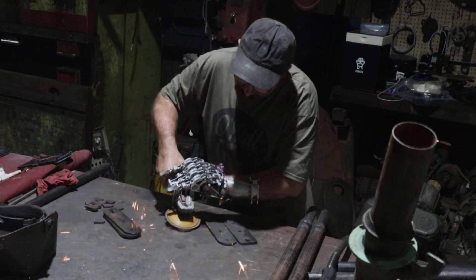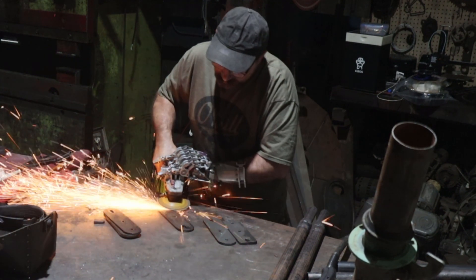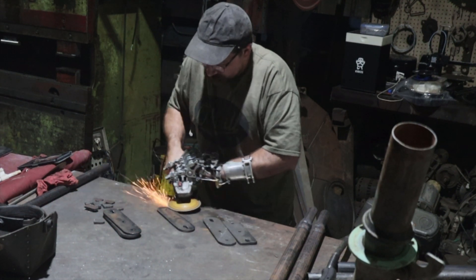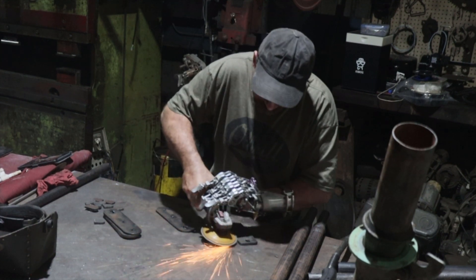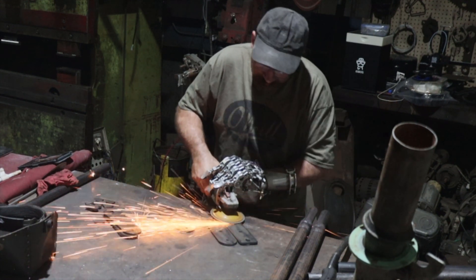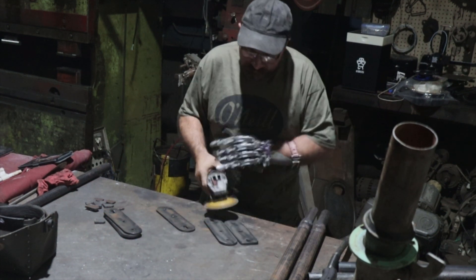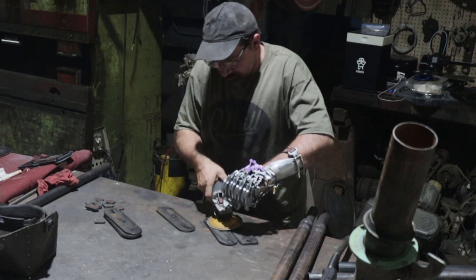With my continued use of this new device, I'm finding more and more applications that I can once again perform. I hope that by continuing to show my progress and innovations in the design of my prosthetic hands, and demonstrating what a machinist working out of a reasonably equipped machine shop in nowhere Southern Oregon can do, I'll somehow be able to affect what the major recognized providers will choose to bring to market and better meet the needs and desires of fellow amputees. Hopefully my work is also inspiring others to take it upon themselves to design prosthetic devices that are more in line with their individual needs.